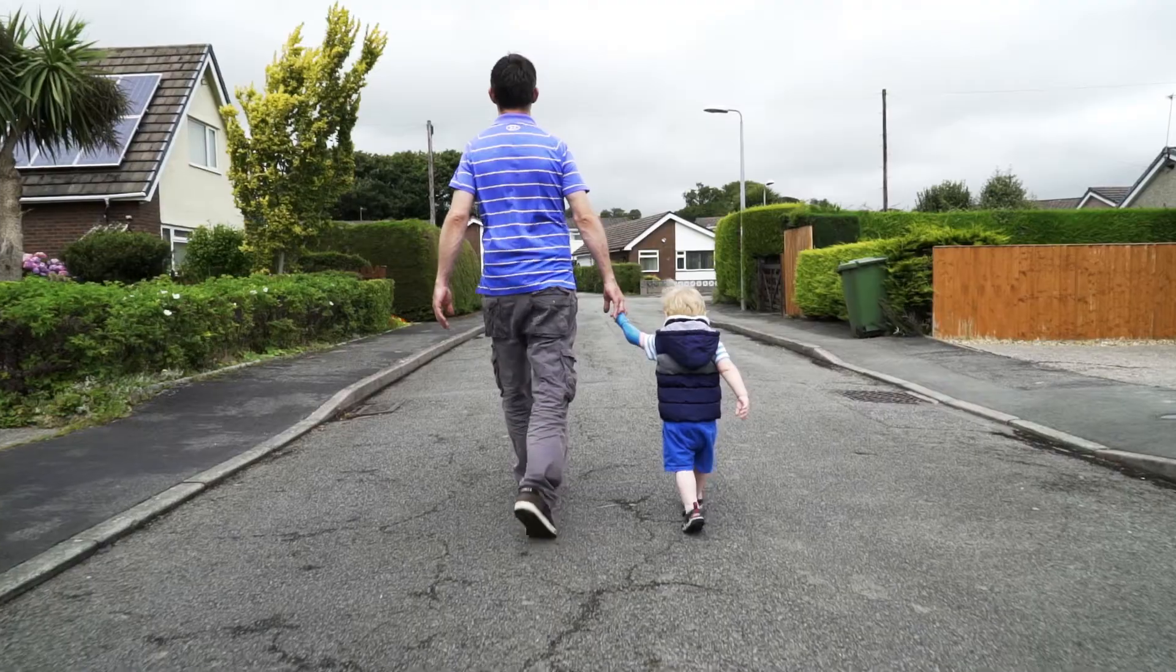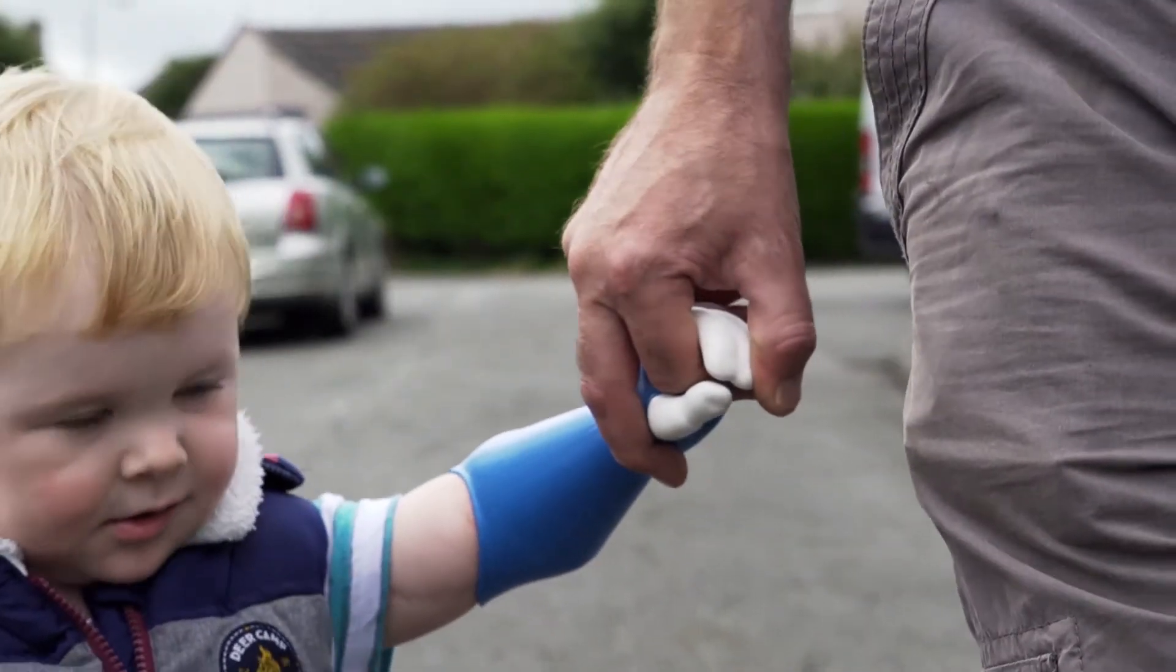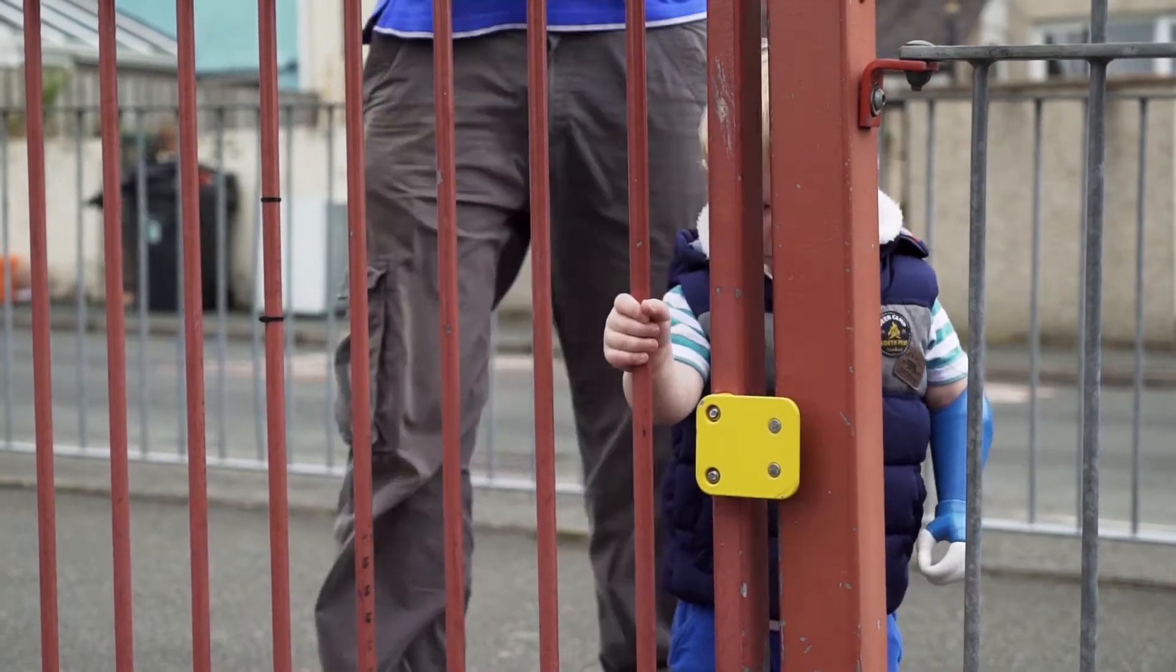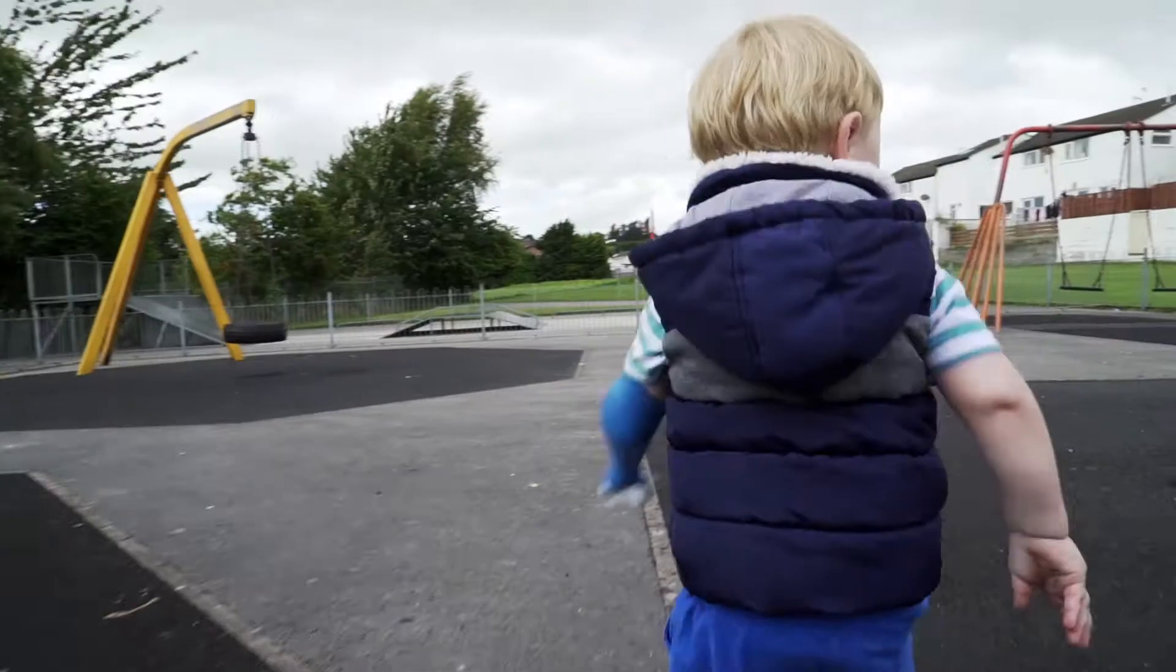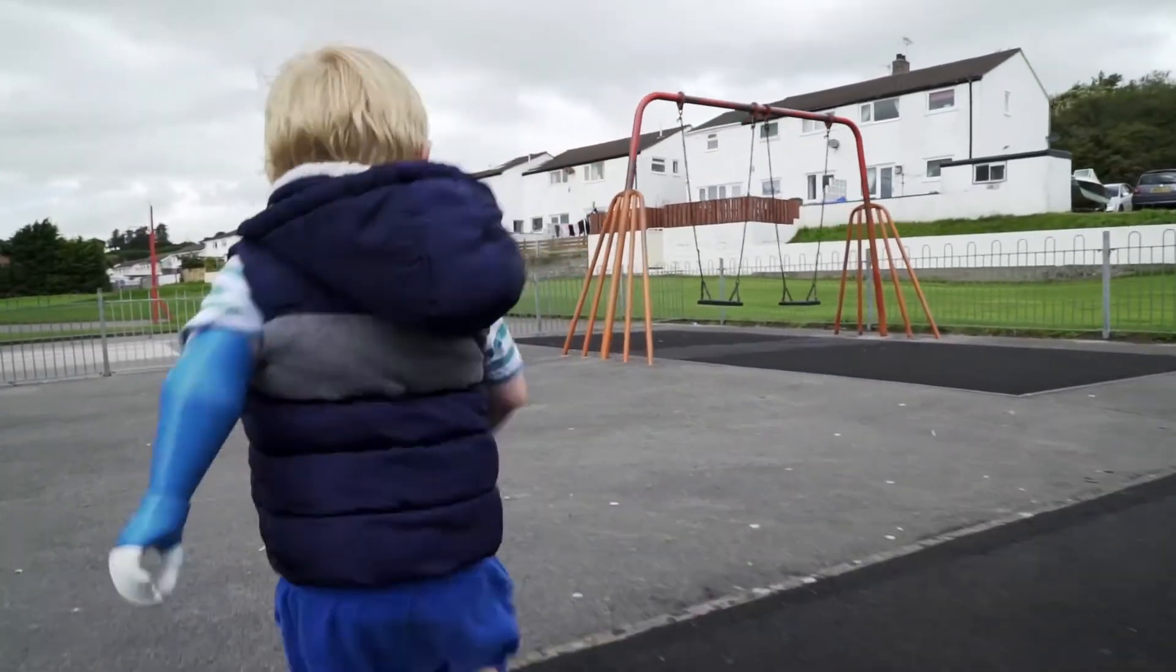Once I got the socket fitting and the arm was the right size, I took the blue arm into Sol's room and he slid it onto his stump. And he actually said the words, it fits properly. And he just wanted to go to school and show it off to all his friends. And that's when I knew I'd done it right.